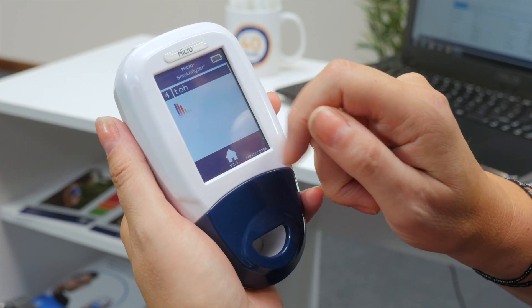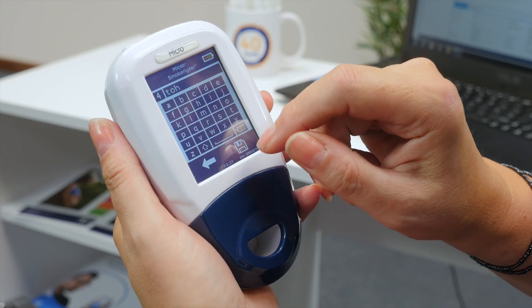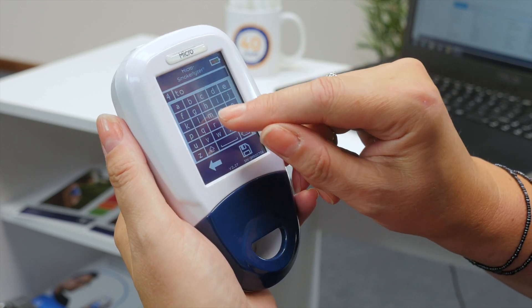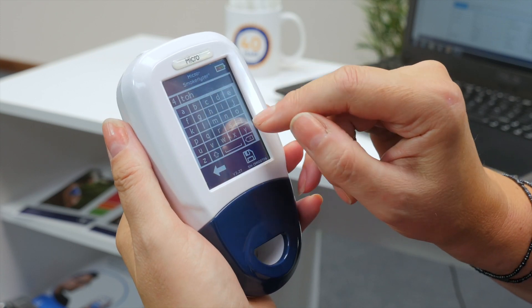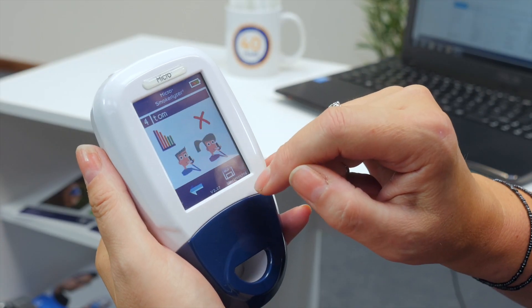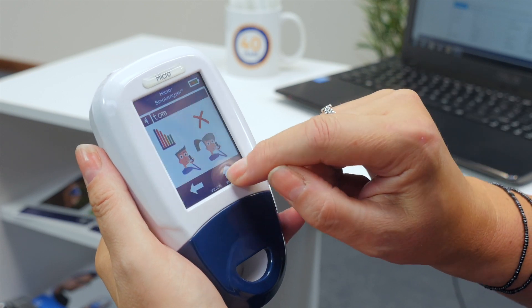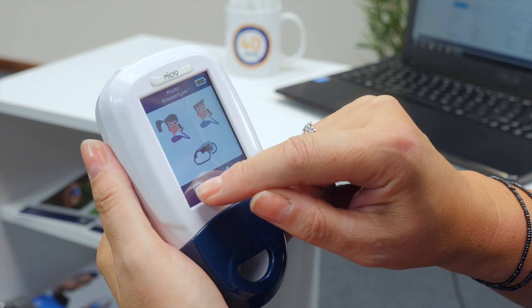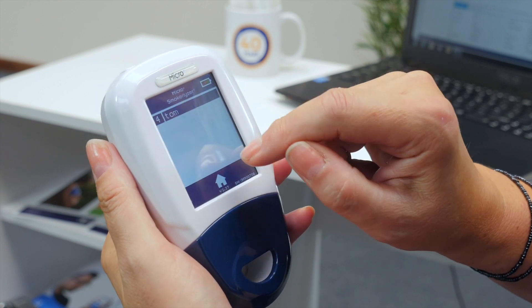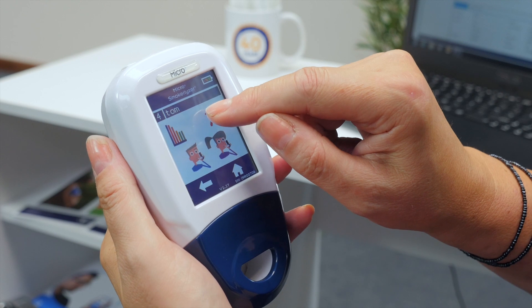To edit an existing patient, click on Register and then select the patient you wish to modify. To change their name, click on their name at the top of the screen and use the keypad to edit. Once you are happy with the changes, click Save to register them or the back arrow to cancel. To delete a patient, simply click the X whilst on their patient profile and click X again to confirm.